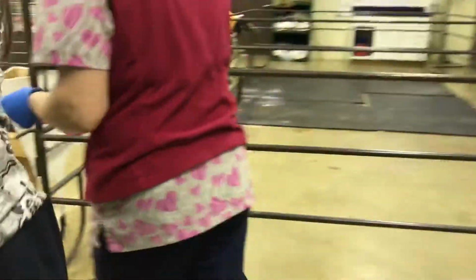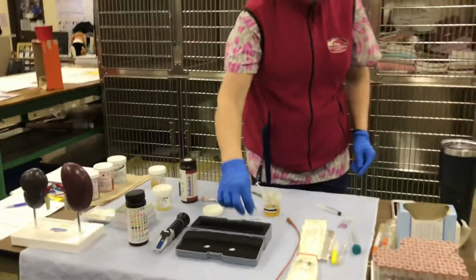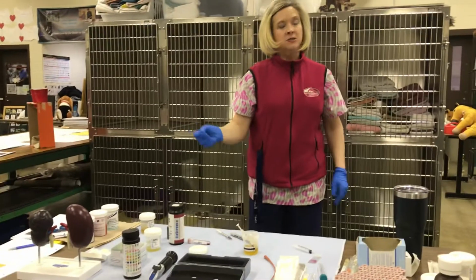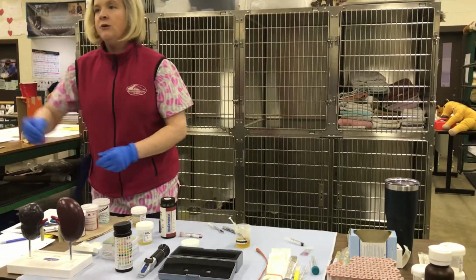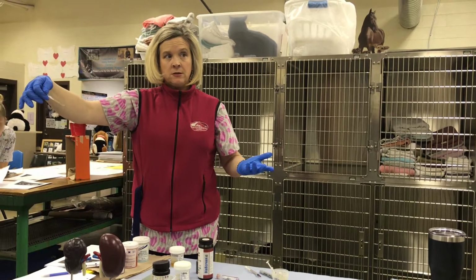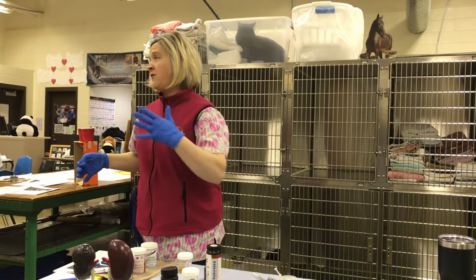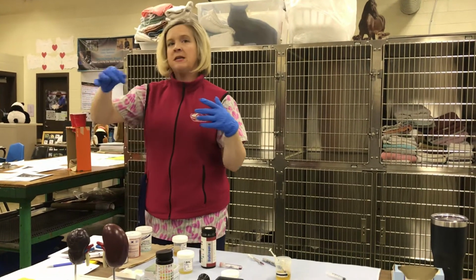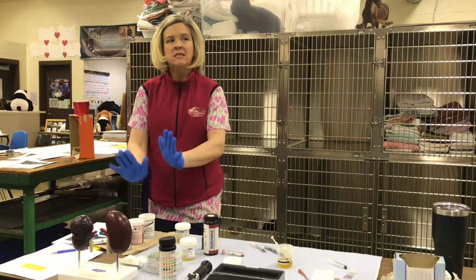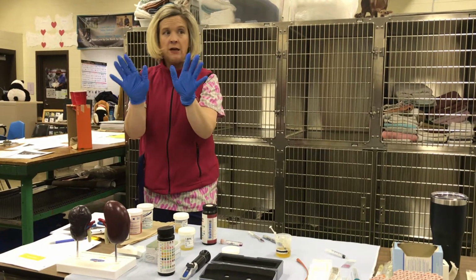Your cytology. So what you're gonna do with your cytology, once the sample is dry, okay, we are now gonna diff quick this particular sample. Again, we do not want to use the same diff quick stain that we're using for normal cytologies, okay? And we do not typically want to use it for, so like fecal, okay? We have to be careful because of bacterial contamination. So with that, make sure that you're not using it with the same stain that we're using for cytologies, like fine needle aspirates or blood smears or any other.